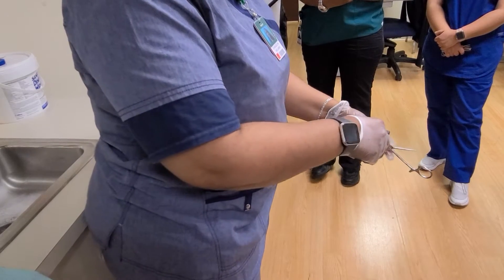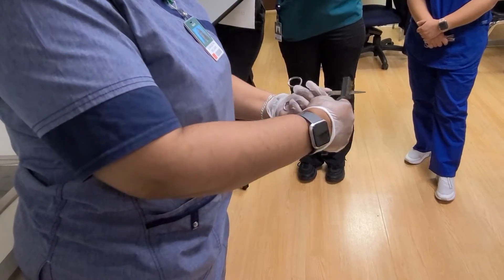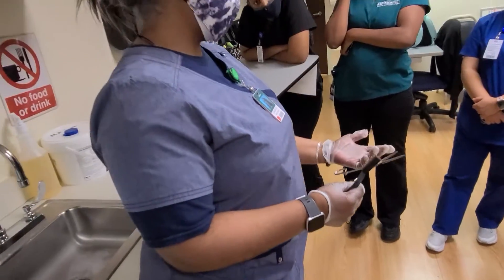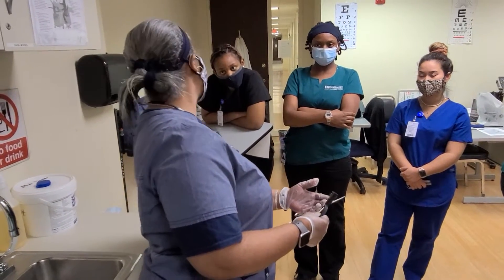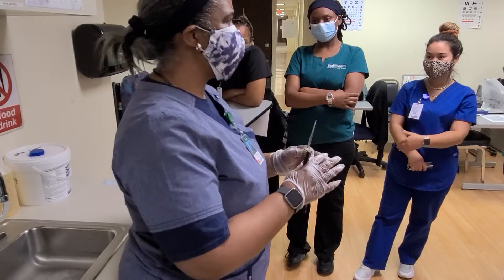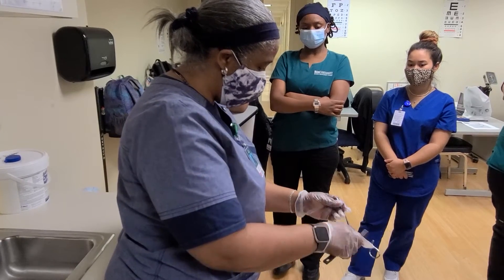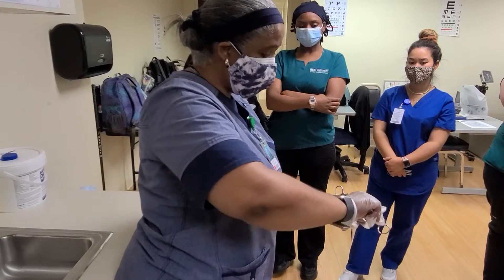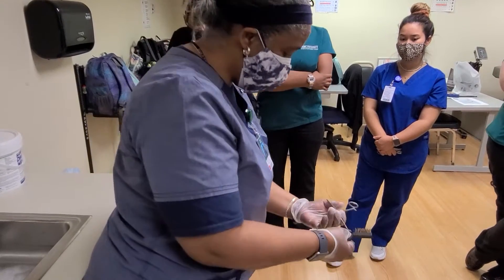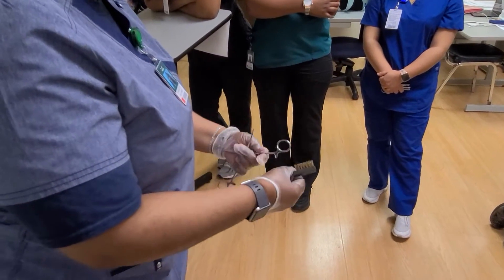I'm also going to go into the grooves, on the side here, and then I'm going to do each side — all four sides. Make sure I get the tip. I clean instruments like they're going into a family member that I love. I'd look at it to make sure it was as clear and free of pathogens as possible. I'm going to do all four sides, opening it up. Then I'm going to do the ring — inside and outside, both rings. I'll do the lockbox, again in the direction of the serration and then the opposite way. Then I rinse it.